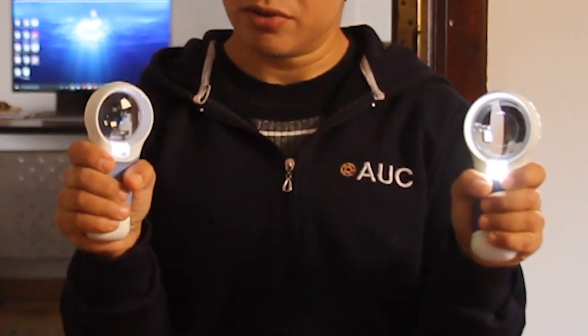One of the major advantages of these Coil products is that they have a huge magnification range. Both the AT-8 and the AT Max range from about 3x all the way to 11x, and there are other Coil products that go even higher, up to 15 or 16x. They're also, as you can see, very light and portable, slim — they can fit in your pocket. I also quite like the LED light, especially on the AT Max. It's very bright, whereas on the AT-8 you can see it's a little bit less bright. Both of these are fully charged right now, so you can see the difference.